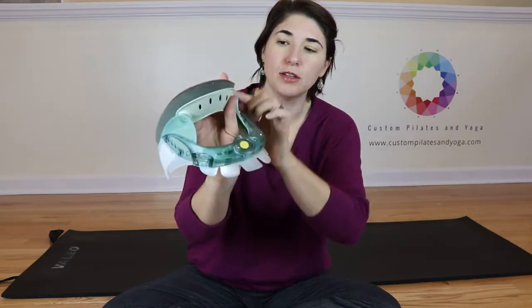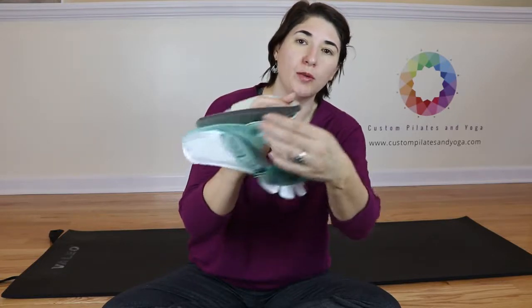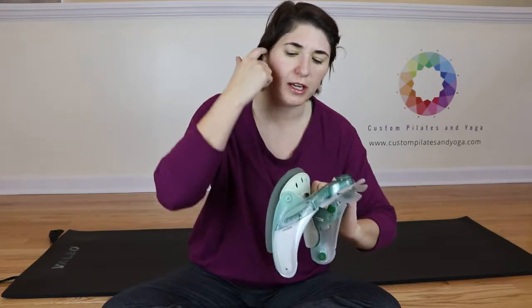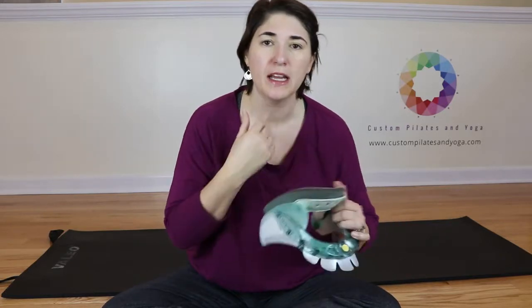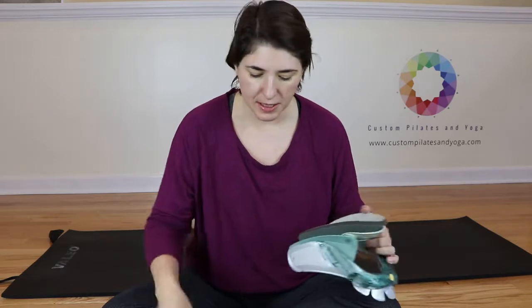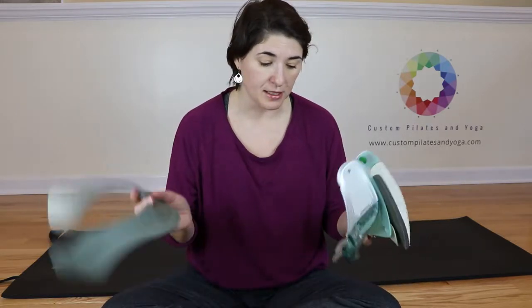When I put this on, you notice I've got a little bit of foam edging all the way around, as opposed to having it go flat. If it went flat, the very edge of my chin might press into that plastic, and that's totally undesirable.